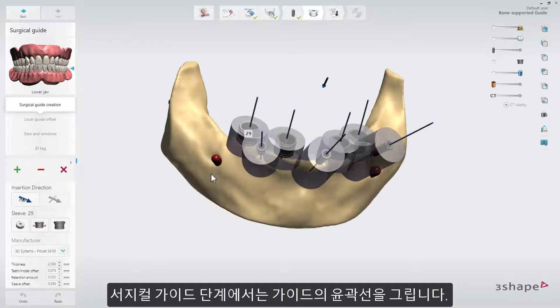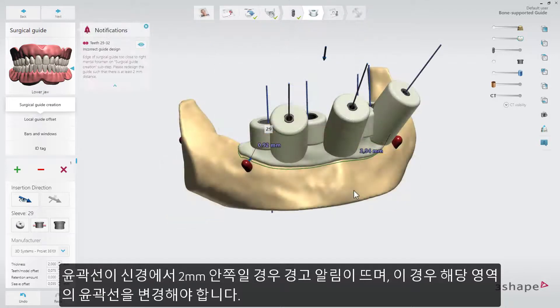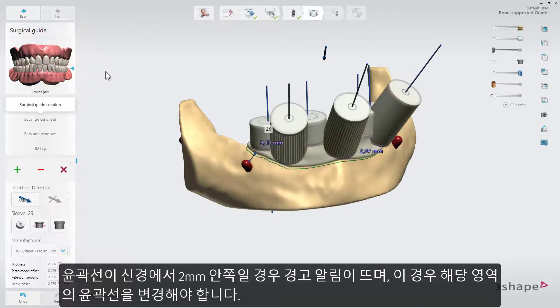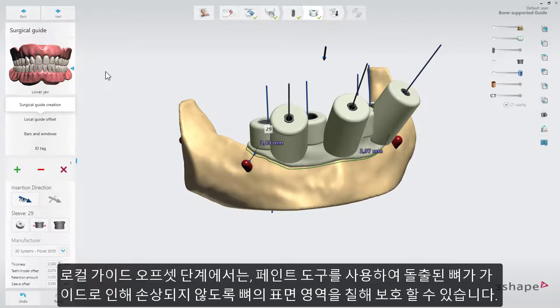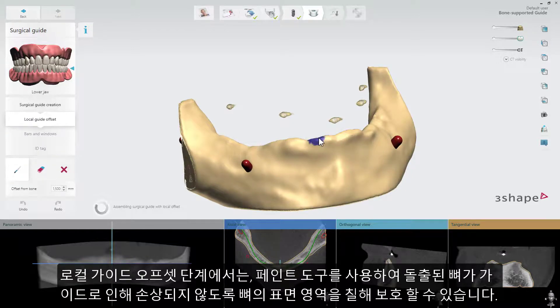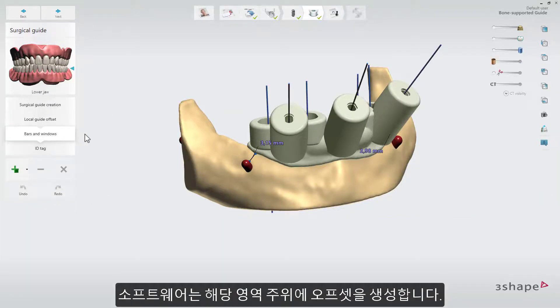In the Surgical Guide step, draw the outline for the guide. It is a recommended best practice for bone-supported surgical guides to not go too deep lingually when drawing the outline. You will get a warning if the outline is closer than 2 mm from the nerve — in that case, edit the outline in that area. Also keep in mind to have the sleeves away from the bone surface area. At the Local Guide Offset sub-step, you have the possibility to use the tools to paint the areas on the surface model where the bone might protrude through the guide. The software will create the offset around those specific areas.